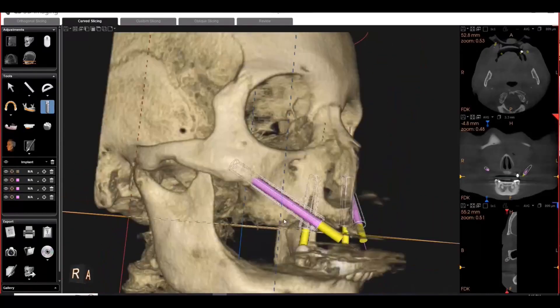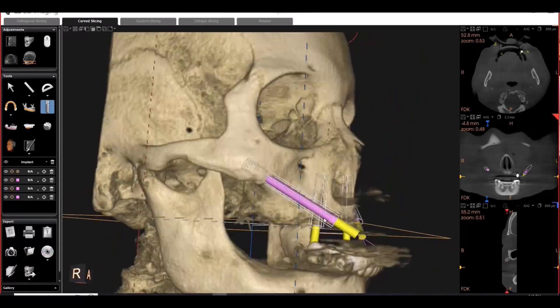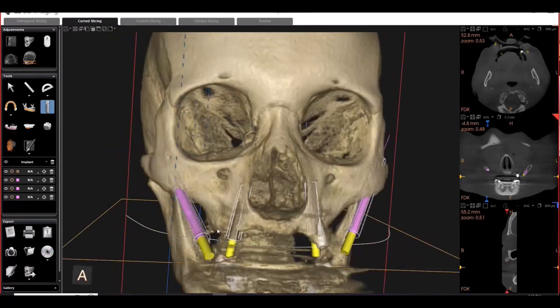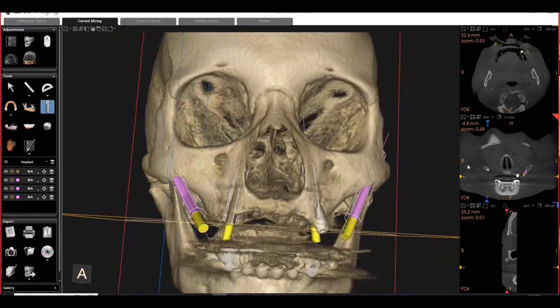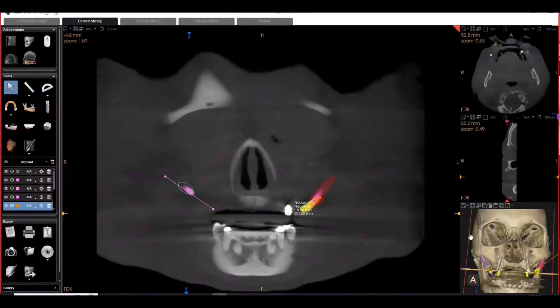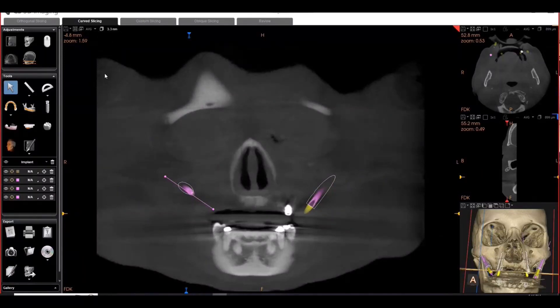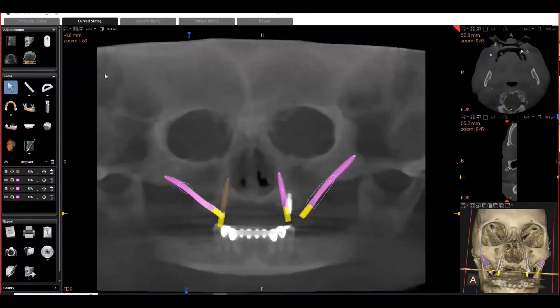As you can see, he was using standard implants from the implant library. But if you don't know where to find them, those implants might be challenging to find because not every implant system is going to have really long implants for Zygomatic planning. There's another way to do it where you can actually create your own custom implant, which I'll show you here in a second.